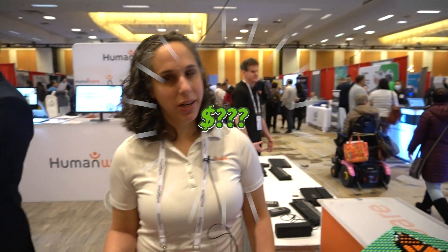Is it for sale yet? So it is not for sale yet — we still have maybe a year to a year and a half before it hits the ground running. This is still in beta and still in development, changing all the time. But the North Star of the Monarch is education of any kind — for students to be able to get their textbooks and read them on the Monarch. Braille textbooks take up a lot of space, time, and cost to produce, but with the Monarch that will streamline a lot of that process.